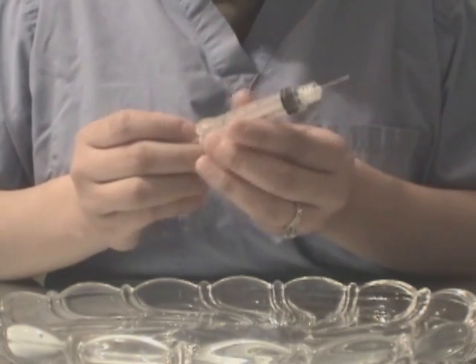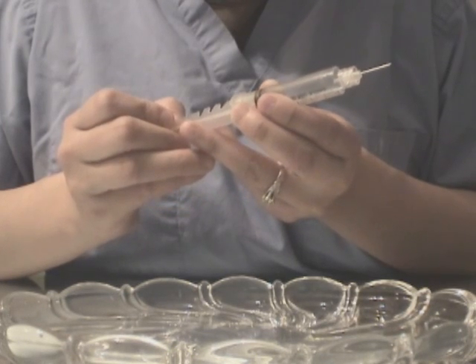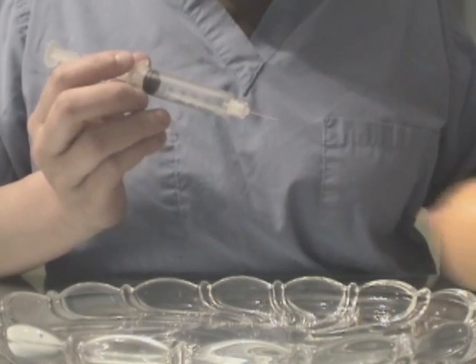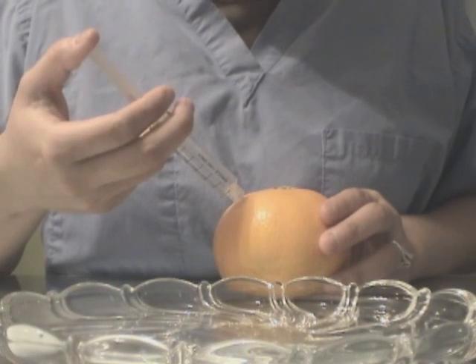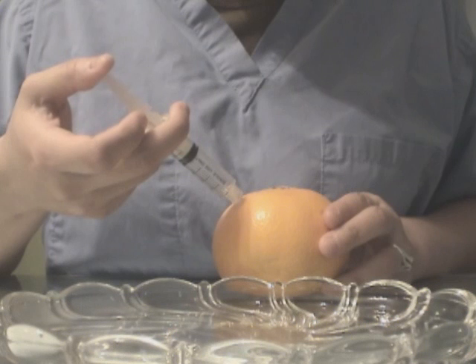As usual, I want to go ahead and give it a pull — remove as much liquid. Let's pretend we are moving some liquid. Then you want to go ahead and inject it into the area. You want to aspirate as usual like earlier. You want to go ahead and inject slowly.